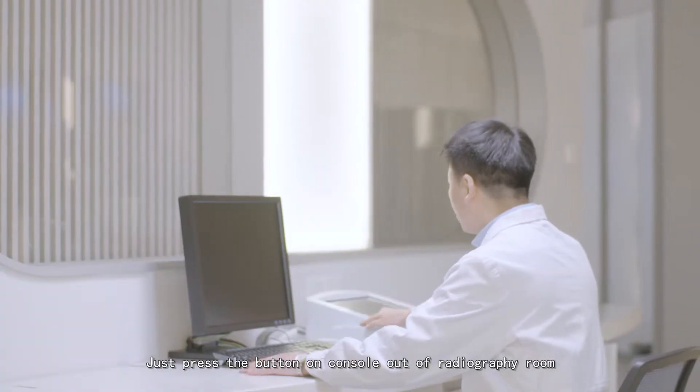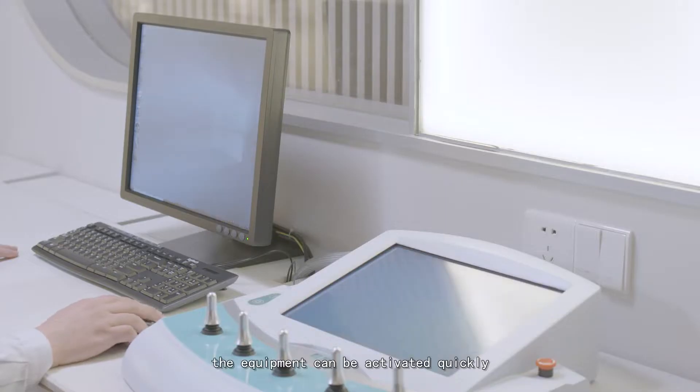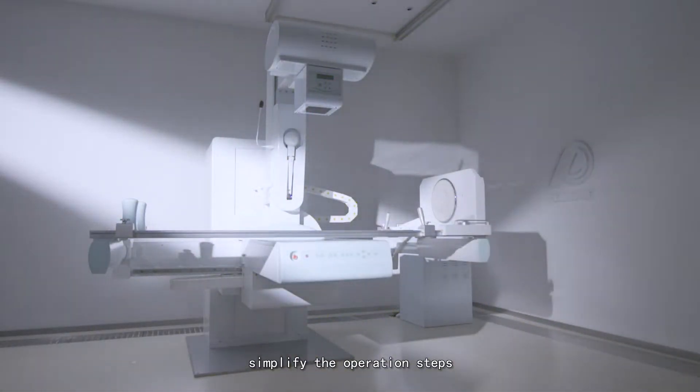Just press the button on console out of the radiography room. The equipment can be activated quickly, simplifying the operation steps.